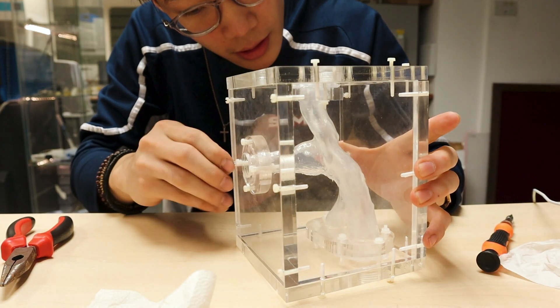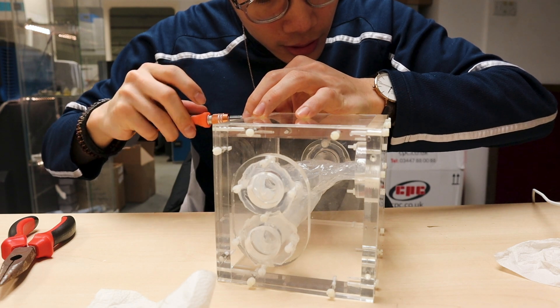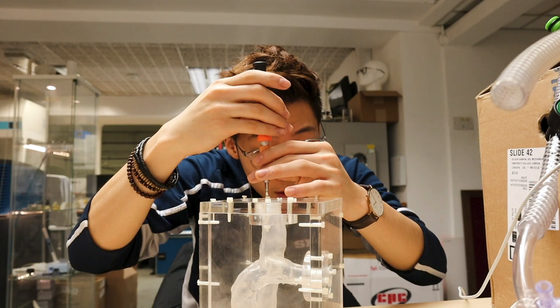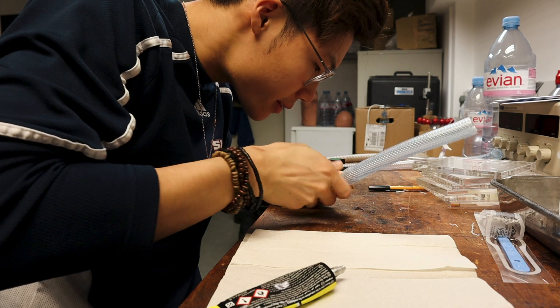When the model was done we assembled the box with plastic screws, which actually took longer than expected because it wasn't so easy to put a box around the physical model. We used plastic screws because we were about to put this in an MRI machine — a massive magnet — so you don't want any metal screws in there. The last step involved a bit of plumbing: cutting some tubes and using valve taps and connectors to complete the whole circuit.